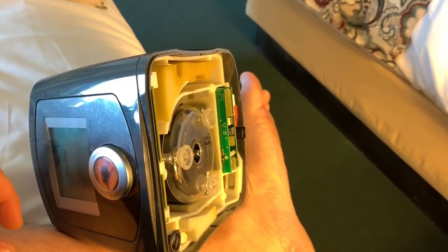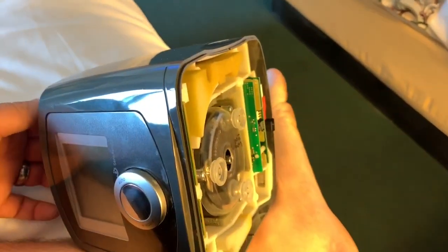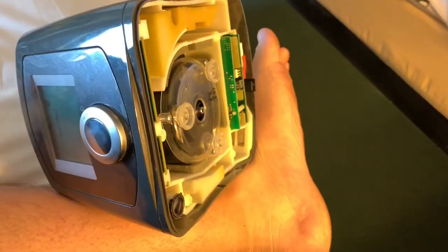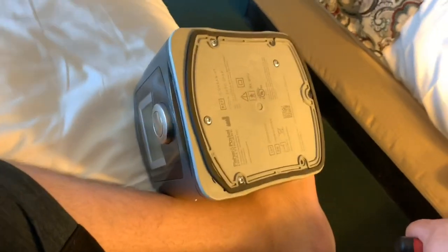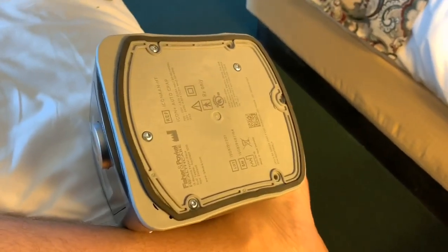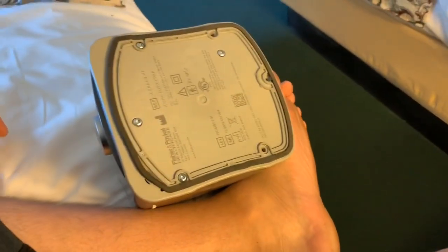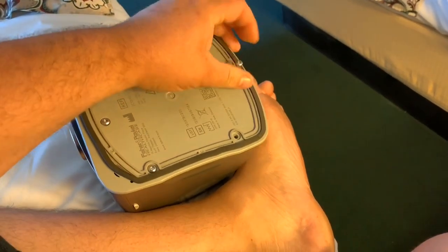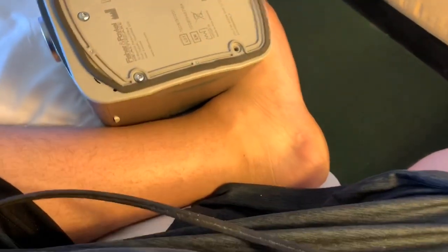Once it's on, you're good to go. Put the thing back together and you're back in business. This little trick has saved me four times now. I haven't had to get to my CPAP machine supplier to get a replacement machine, but this at least gets you by. Going without my CPAP machine for one day, I am miserable — I cannot sleep, I cannot function. I constantly wake up from stop-breathing episodes. This is just a little how-to, hopefully to fix your machine and get you back in business. I'm not sure if there is a permanent fix, but this is what I found. I appreciate your time. Have a good one.